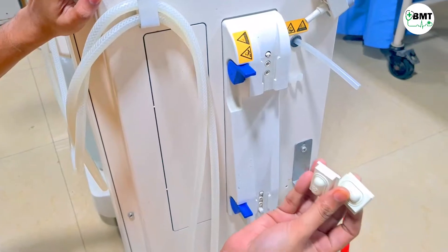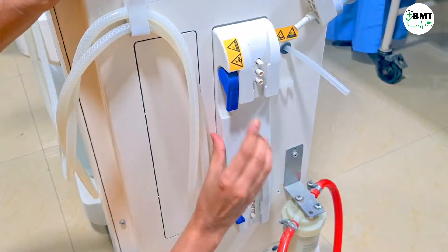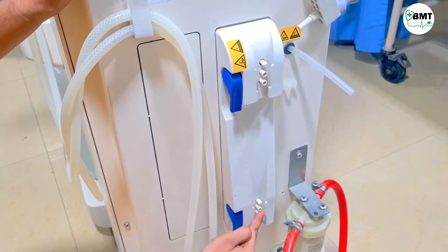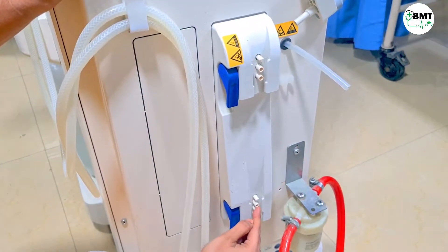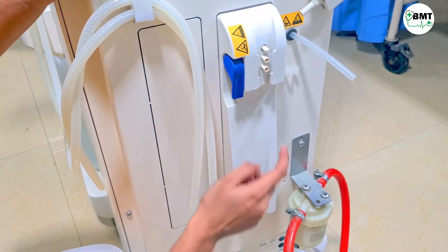In case you do not have these blockers, then pull this down. You can see over here these two. If you have this tubing, then you can connect this in any of the slots and this in any of the slots and bypass the filter.